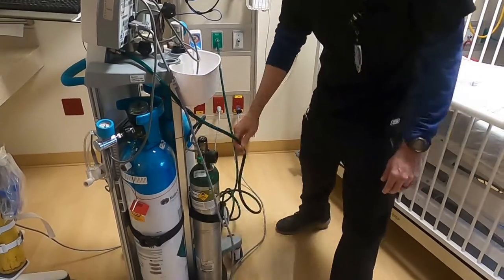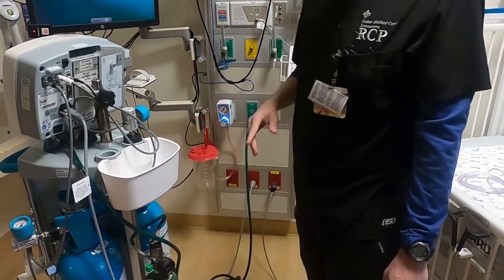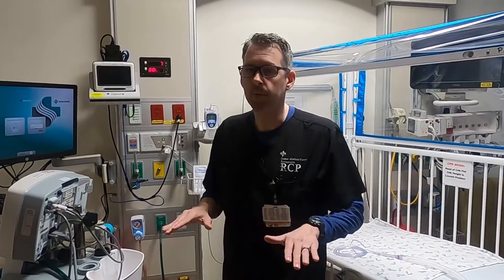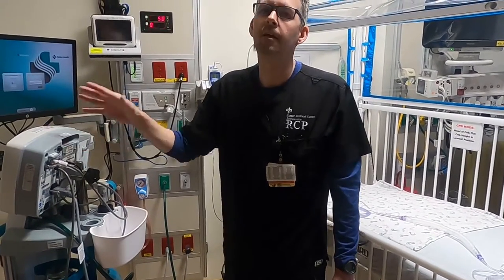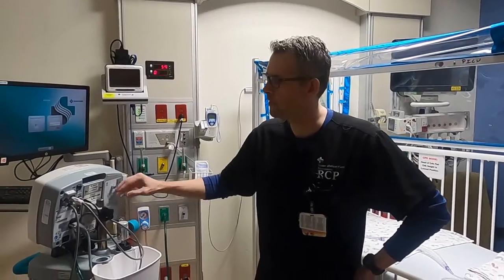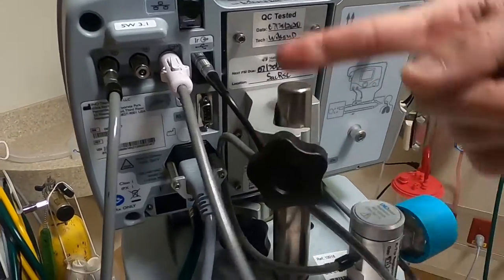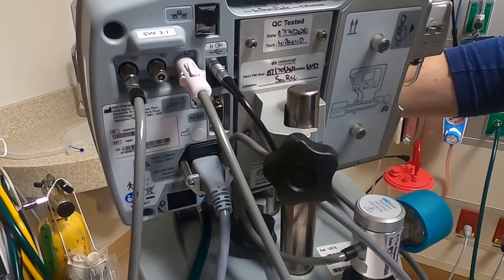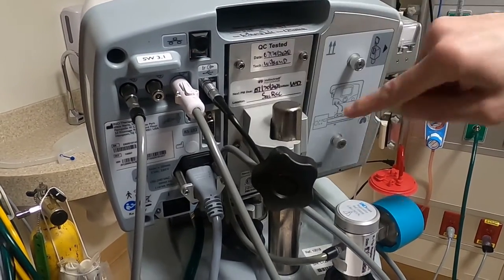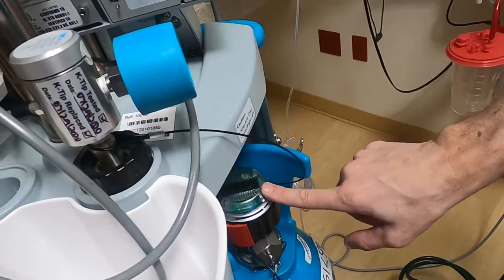The last thing before setup is your oxygen. This needs to go to 50 PSI, 100% setup, unless you have a patient that needs specific SAT parameters — like a single ventricle heart pediatric patient — in which case you'd set it to a blender to deliver a specific FiO2. But generally speaking, 100% is where you want this. Also make sure these lines are plugged in: one connects everything to your blender system in the front for bagging the patient, and the other connects your tank regulator sensors so it can read how much gas you have.